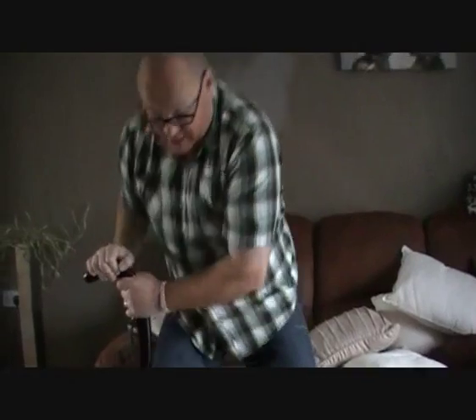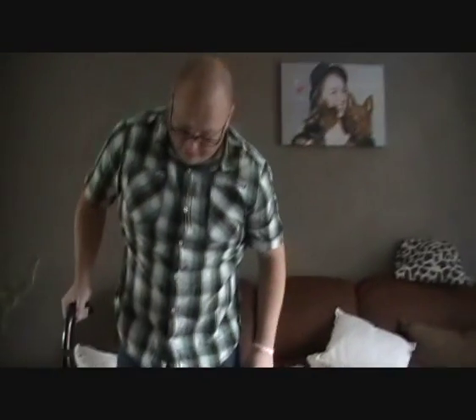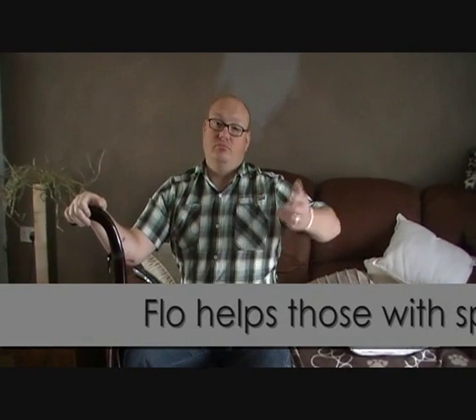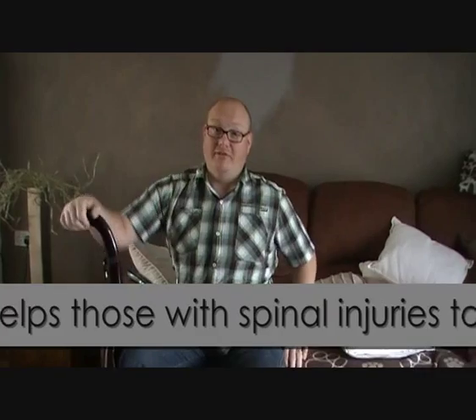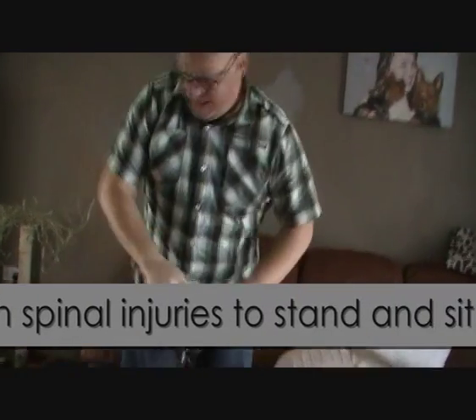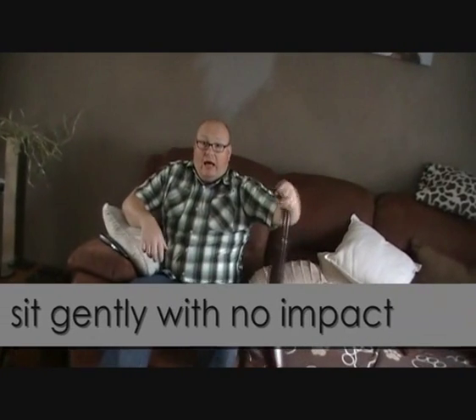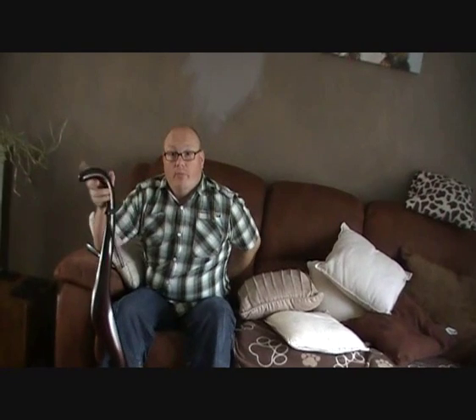It's very easy to use, very straightforward, and it'd be a good talking point. The way I normally sit down, I'll just unceremoniously plop myself down. So basically I just plump down, and two years ago I fell and damaged my coccyx, so I get a lot of problems with my lower back.